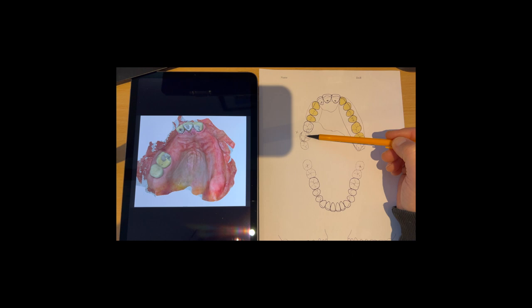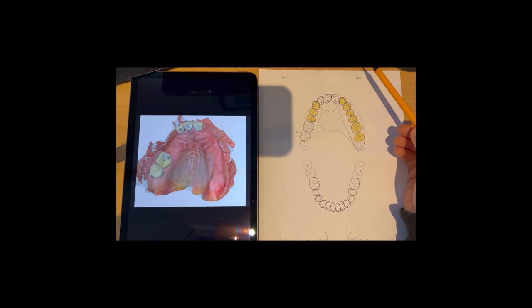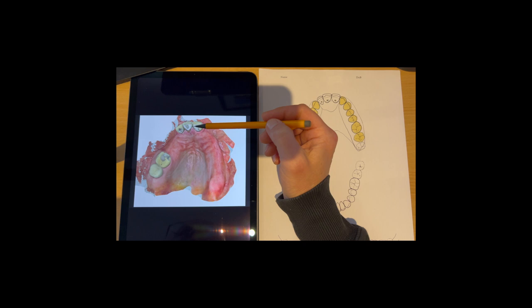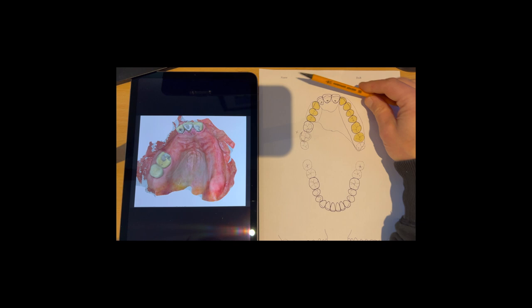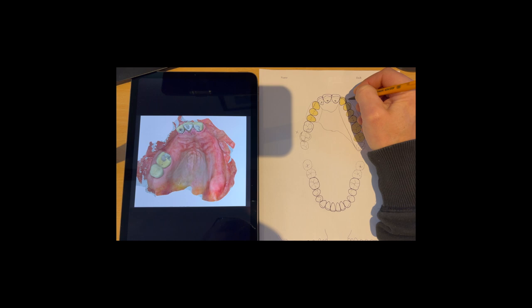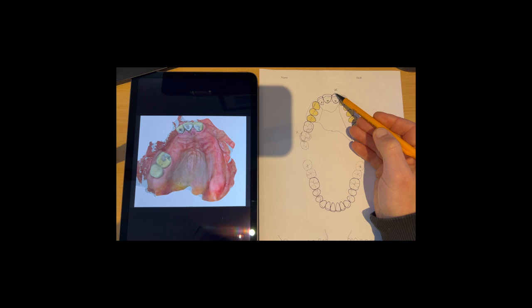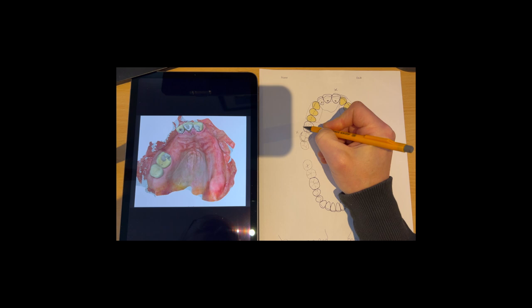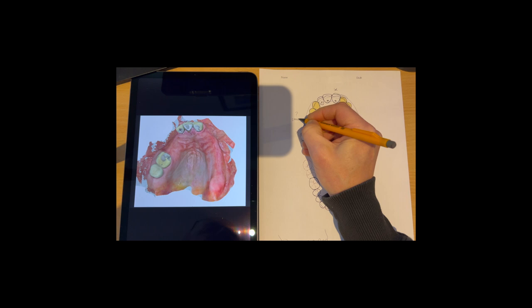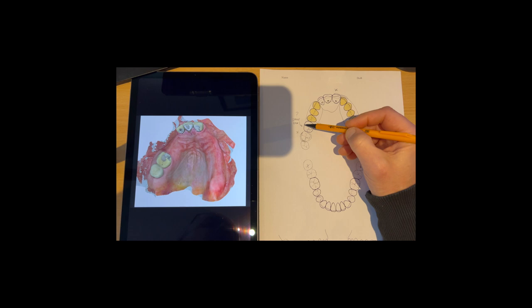But I'm going to keep it all bare and all clear like this, so should that tooth fail, it can be added on to the denture. Should that tooth fail, then that can be added on too. But further on, if we lose all of them, it will be start again, make a new denture completely. So now the front there, I don't have any sort of visual on how this looks from a smile line perspective. So if this patient had a low smile line, I'd be looking to bring a little gold clasp across the front here, and then using that to retain it there. So we've got a clasp there and a clasp there. We can also bring another clasp on here if we needed it, so that would be a possible spare clasp there. But that's just optional.